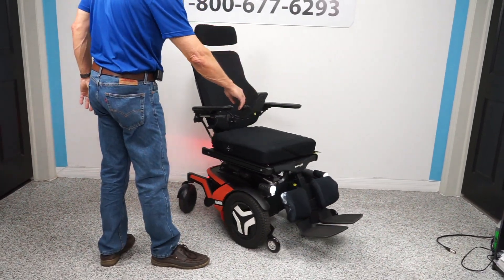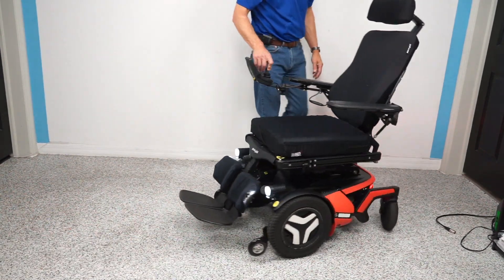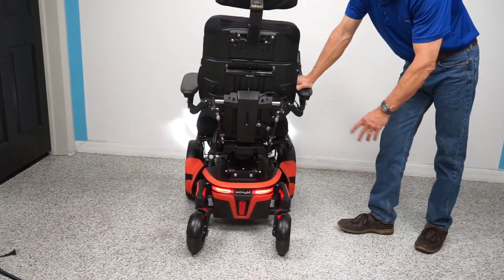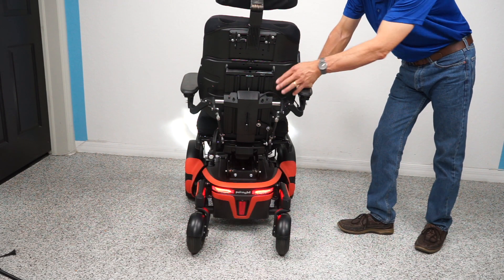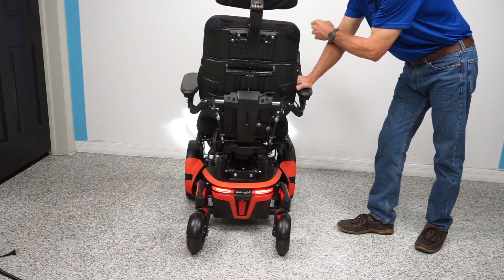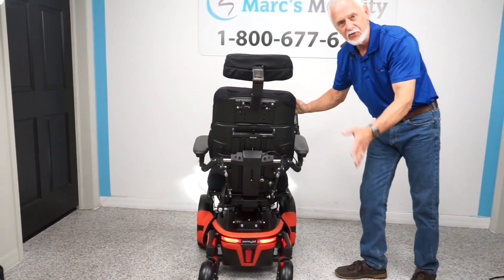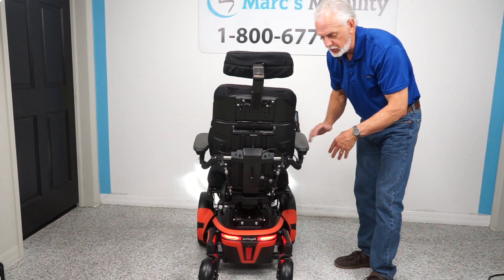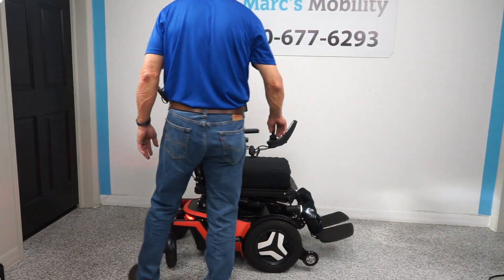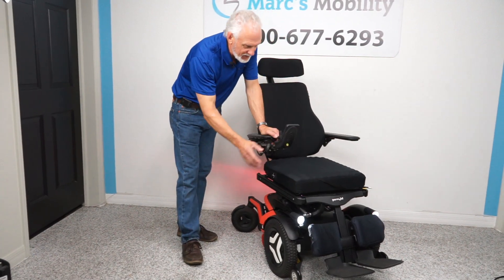This chair is equipped with headlights from the factory — these real headlights light up 20 feet in front of your chair. You also have tail lights. The chair is supposed to have flashers and hazards as well, but they've been disabled on the joystick to free up buttons for the seating system functions. We're going to reprogram it back to factory so the flashing lights are restored.